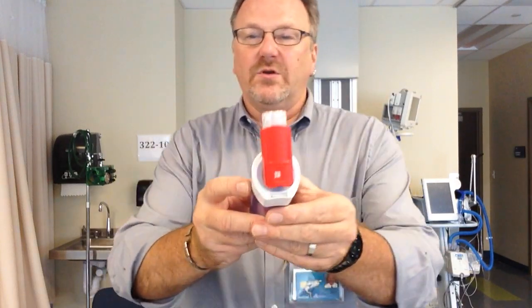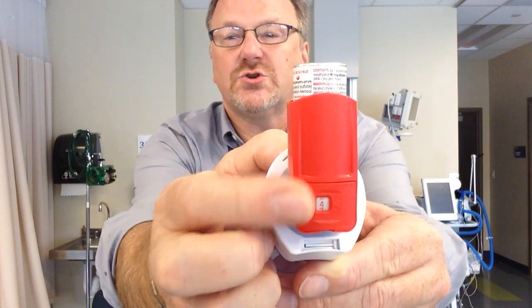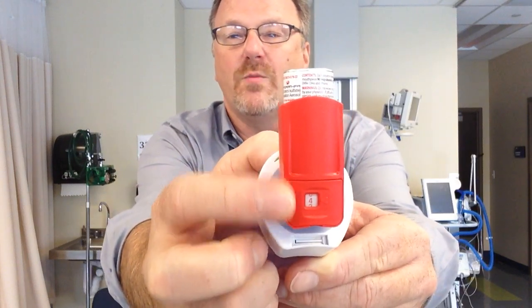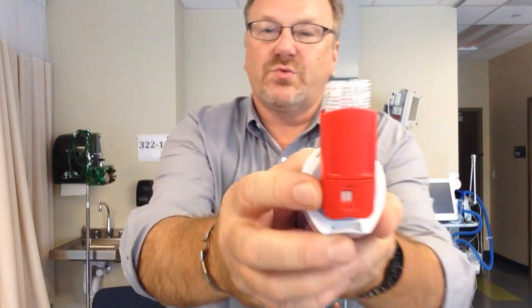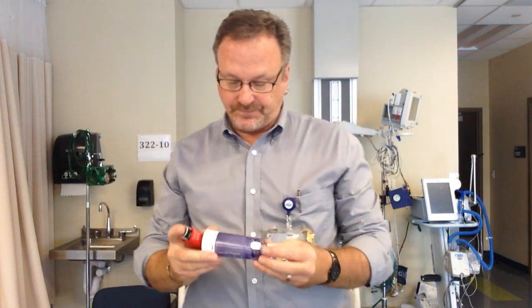If you look at the back, there are counter devices. This is showing me that my albuterol is almost empty — I have four puffs left. If you notice it's red, typically the numbers are black, but once they go red, that tells the patient they're actually getting low on puffs.